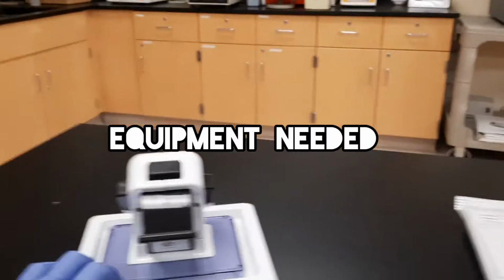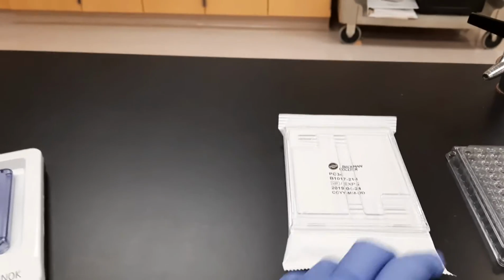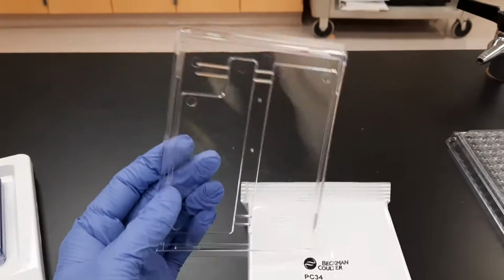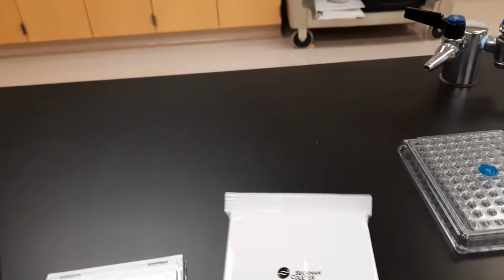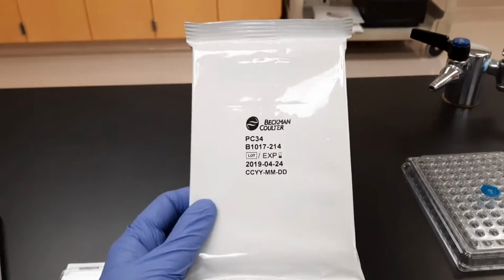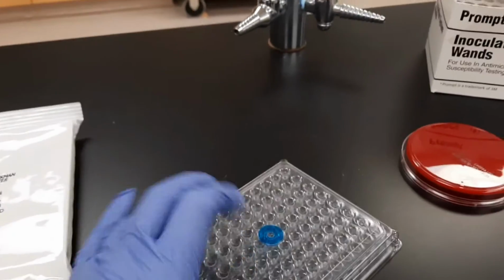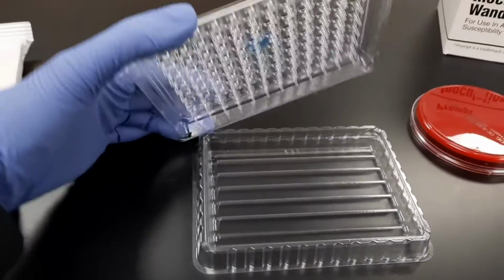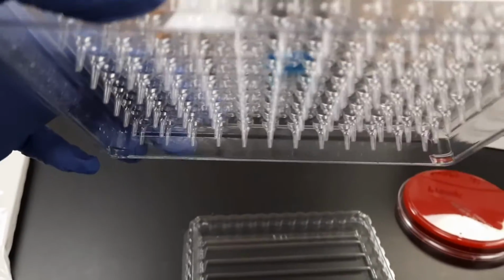Let me show you how to inoculate a panel. You will need a RENOK pipette, a panel lid, a new panel that has not been opened and was allowed to come to room temperature. You will also need a seed tray with a transfer lid, and you can see here are the individual pipettes which will rehydrate each well of our MicroScan panel.